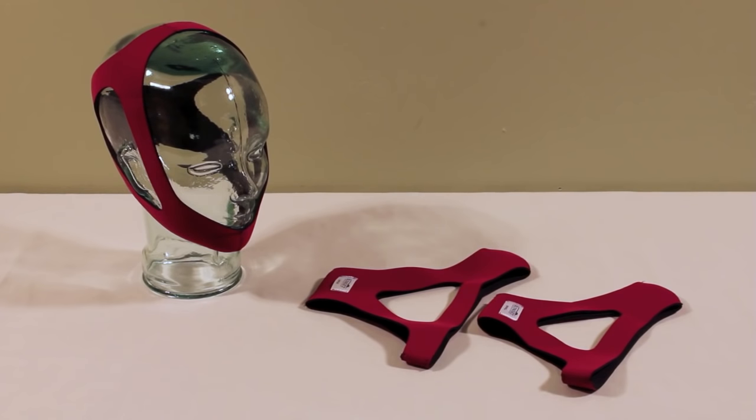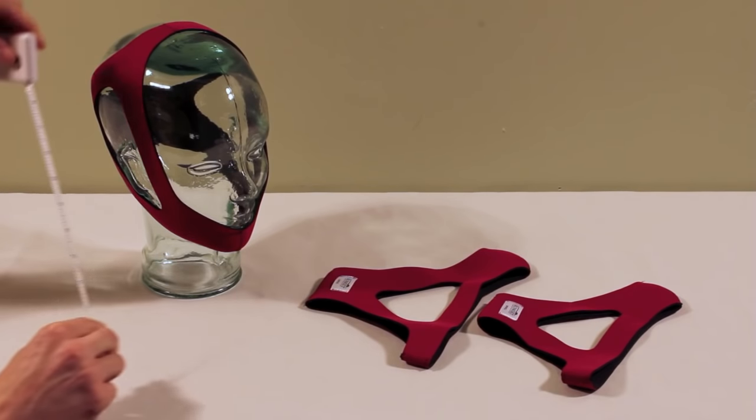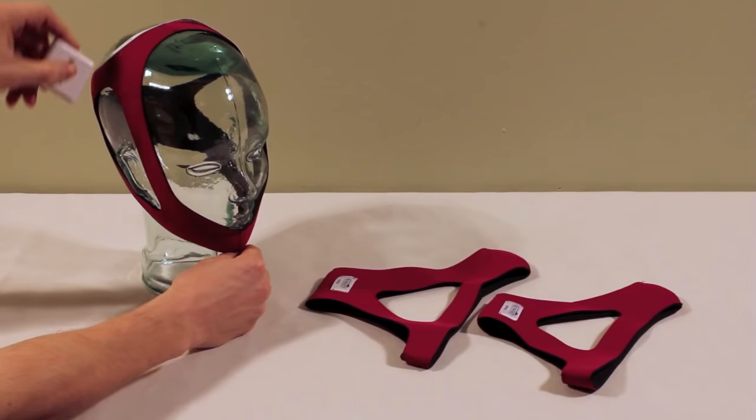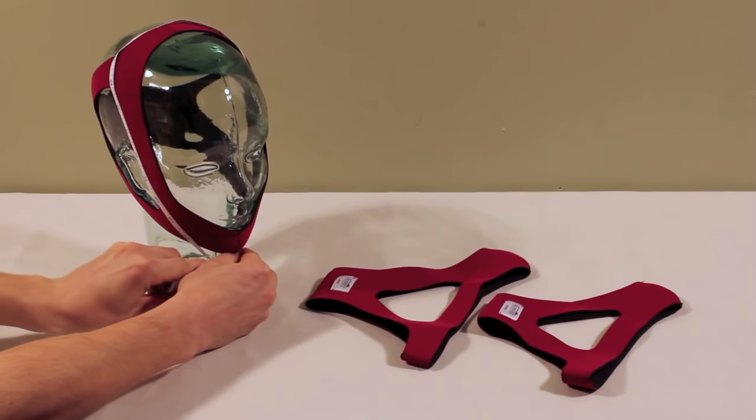I am now going to demonstrate the fitting of the new ruby style chin strap. For this particular head I would choose a medium size. You can determine the proper size by measuring from the chin around the top of the head and back down to the chin like this.